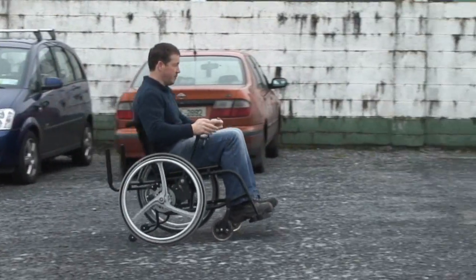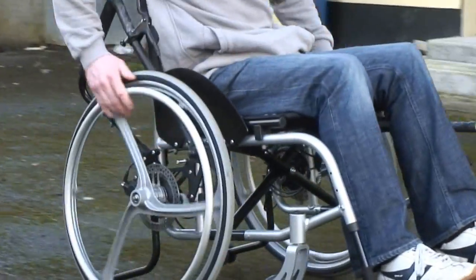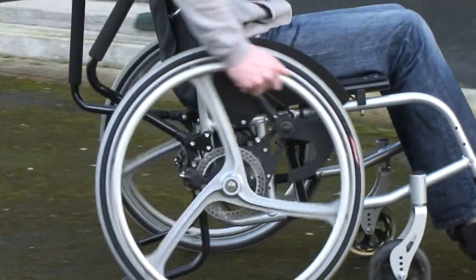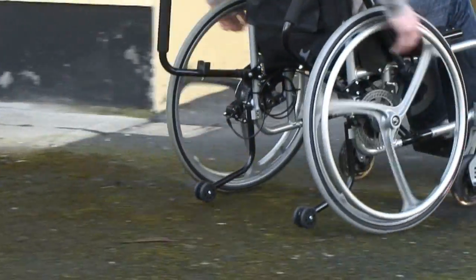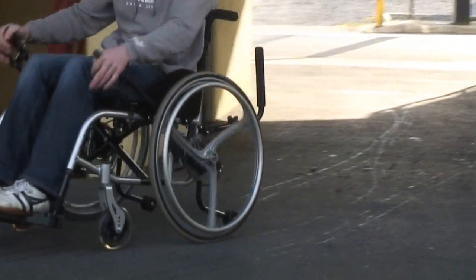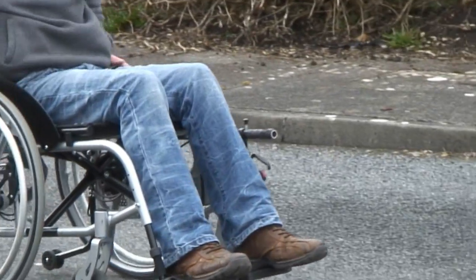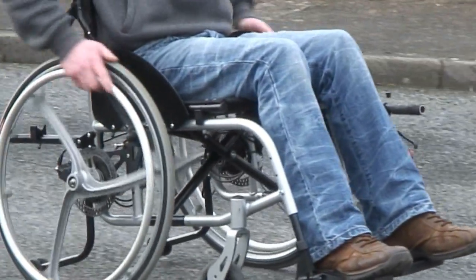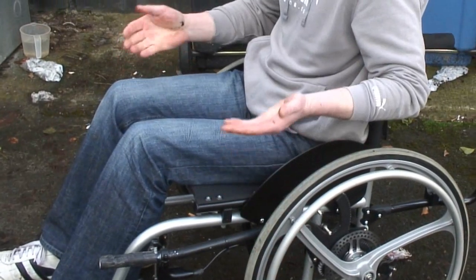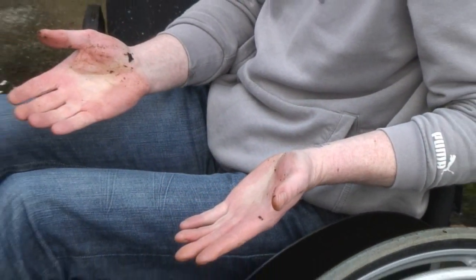The Nordigo system allows the wheelchair user to propel the wheelchair in a more natural and powerful way. Propulsion using the rims of the wheelchair in the traditional method is difficult work and underutilizes the largest, most powerful muscles in the upper body, which are the chest and back muscles. A typical wheelchair user must try and move their entire body weight around on a daily basis using relatively small shoulder and arm muscles. Plus the motion used is very unnatural, which can lead to wrist and hand injuries.